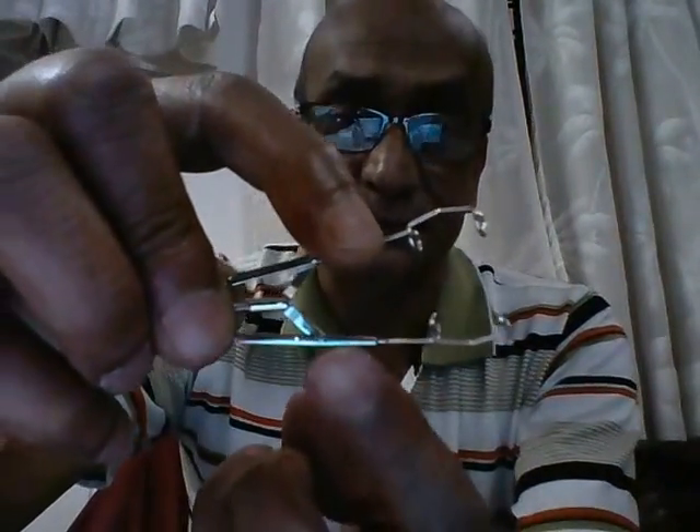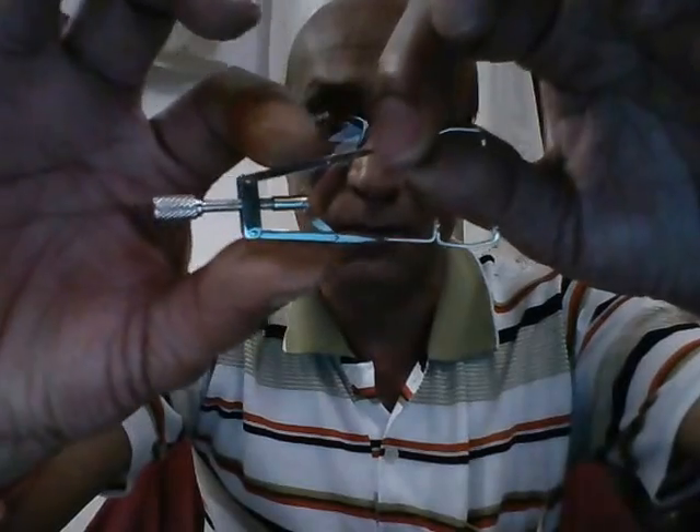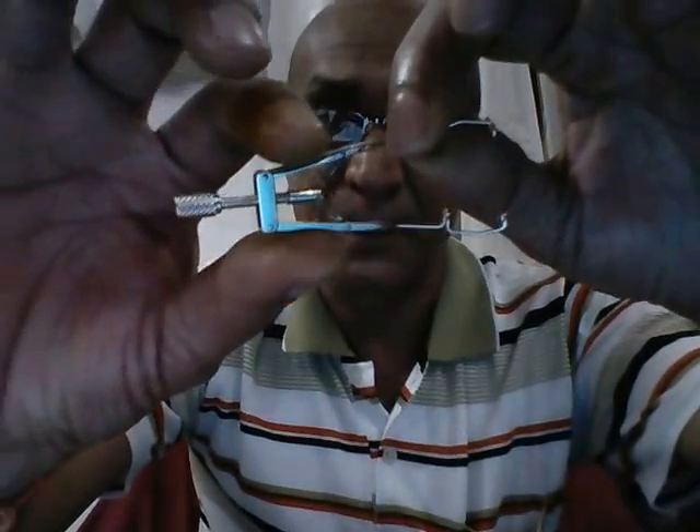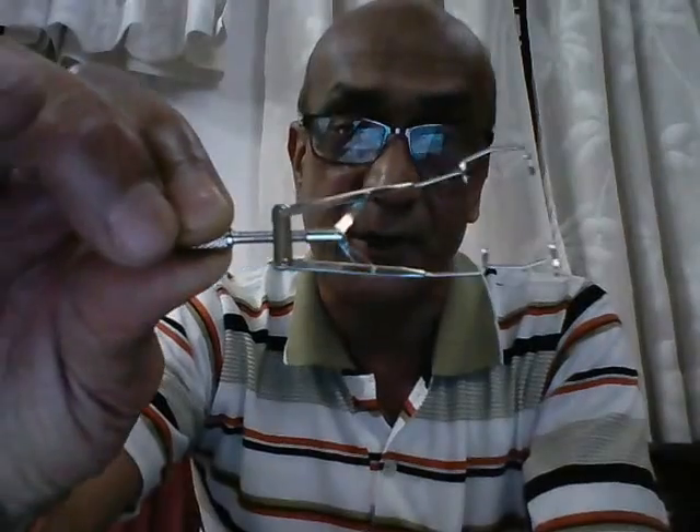That's why this is also referred to as the adjustable eye speculum. This is a universal eye speculum insofar that it can be used in either eye. We can use it on one eye like this, or we can turn it and use it in the other eye. We can see there is a small angulation here — this angulation is the one which goes over the orbital margin. The portion on my right hand is the adjustable section, used to adjust the width of separation of the speculum.